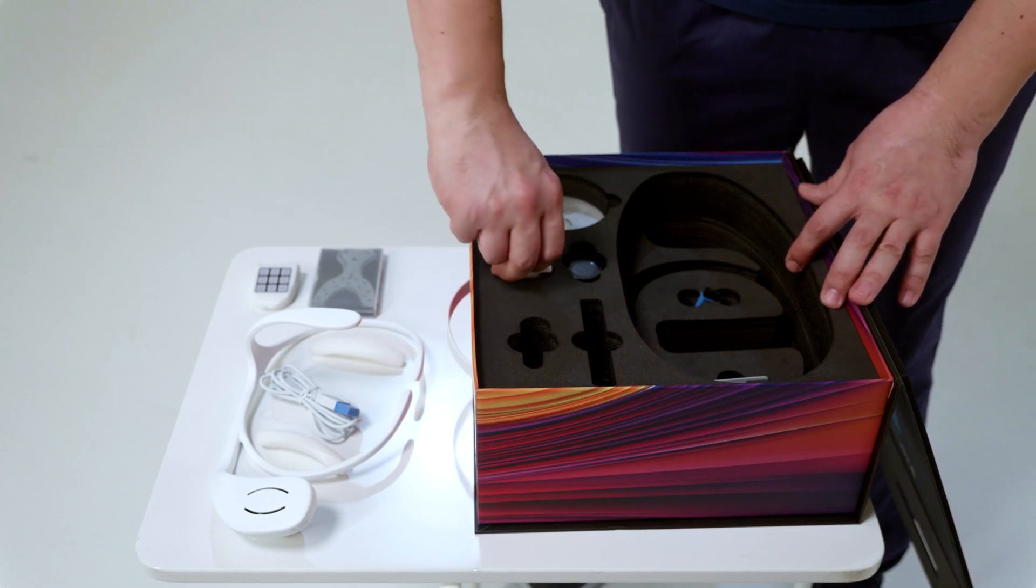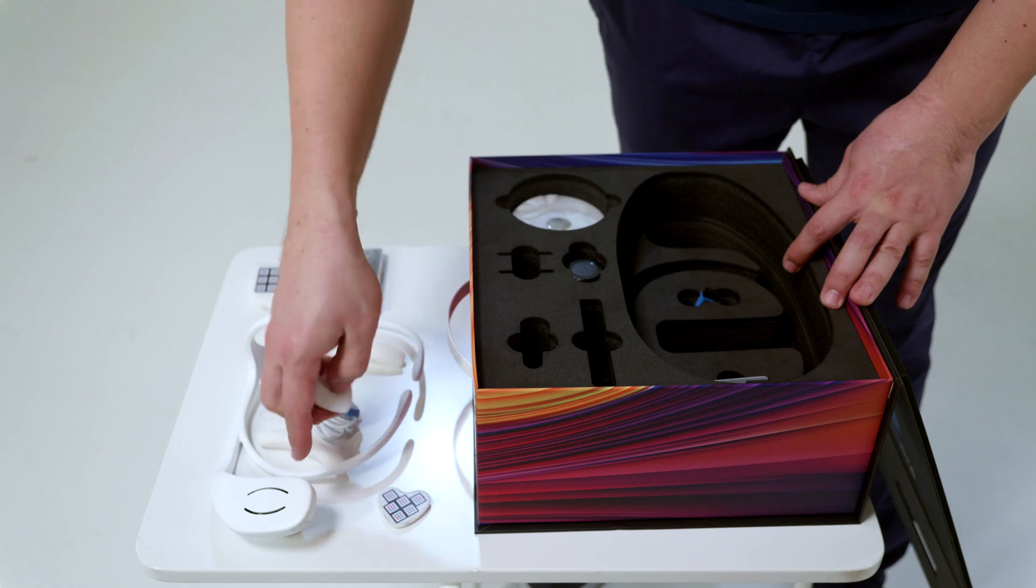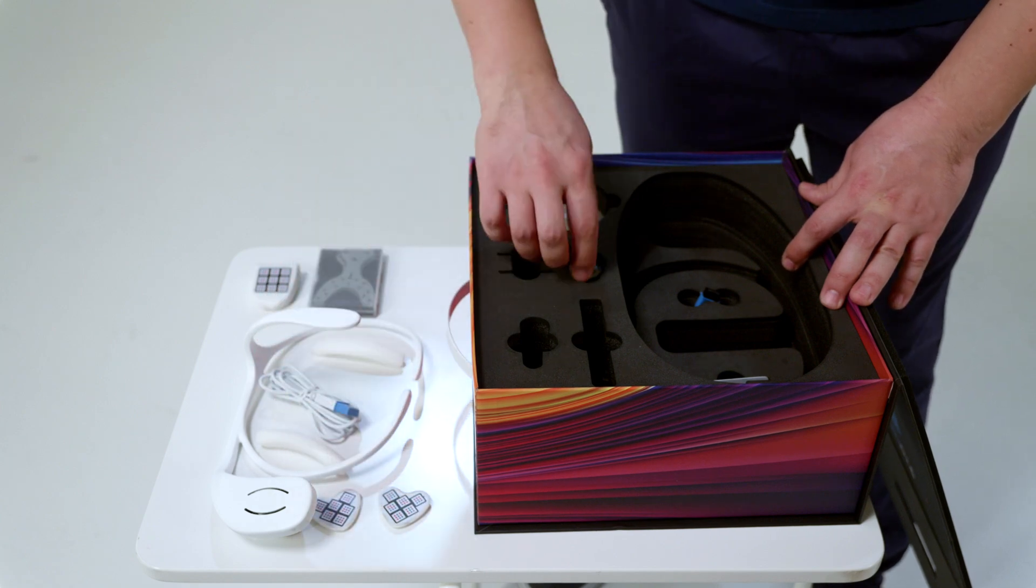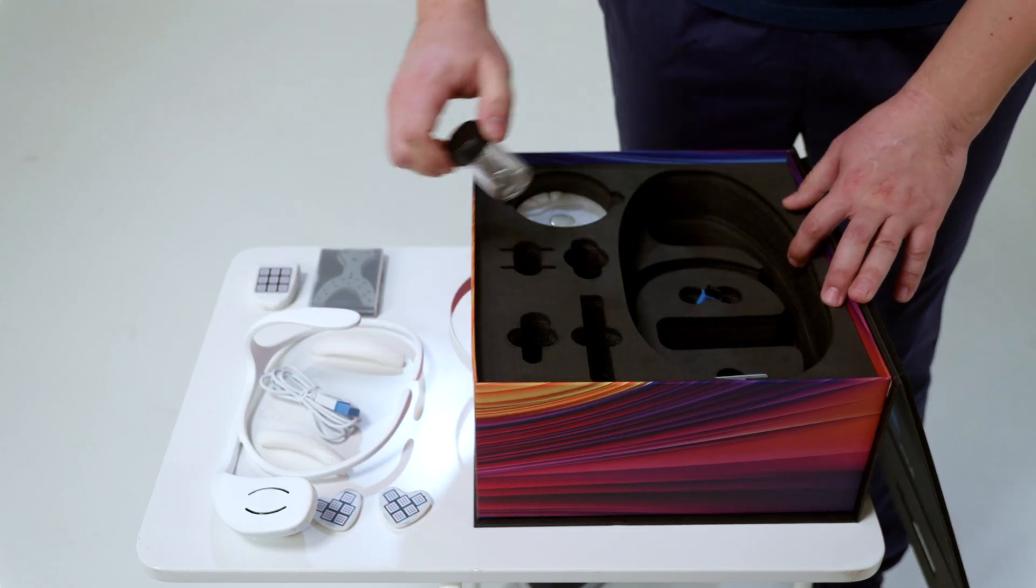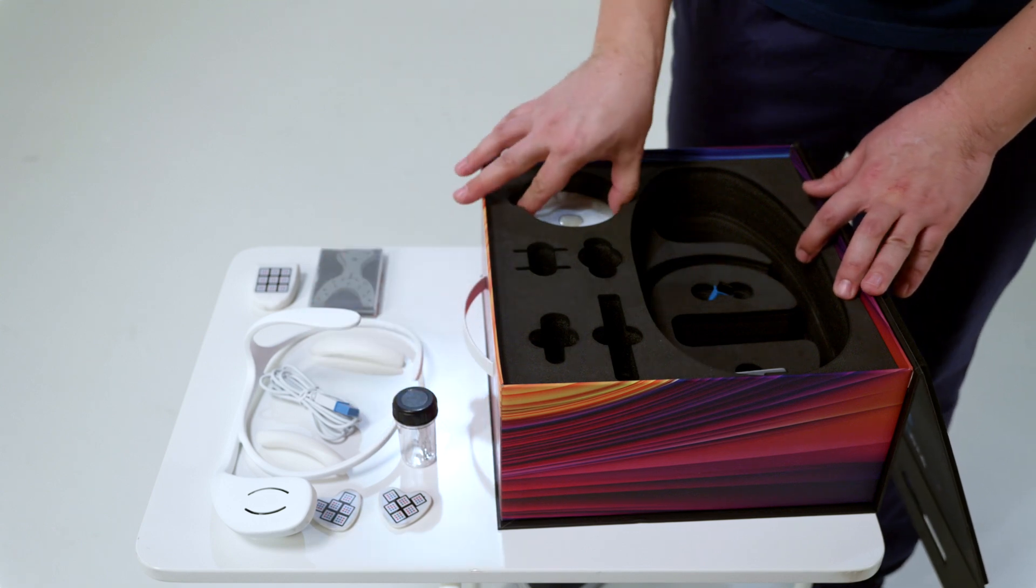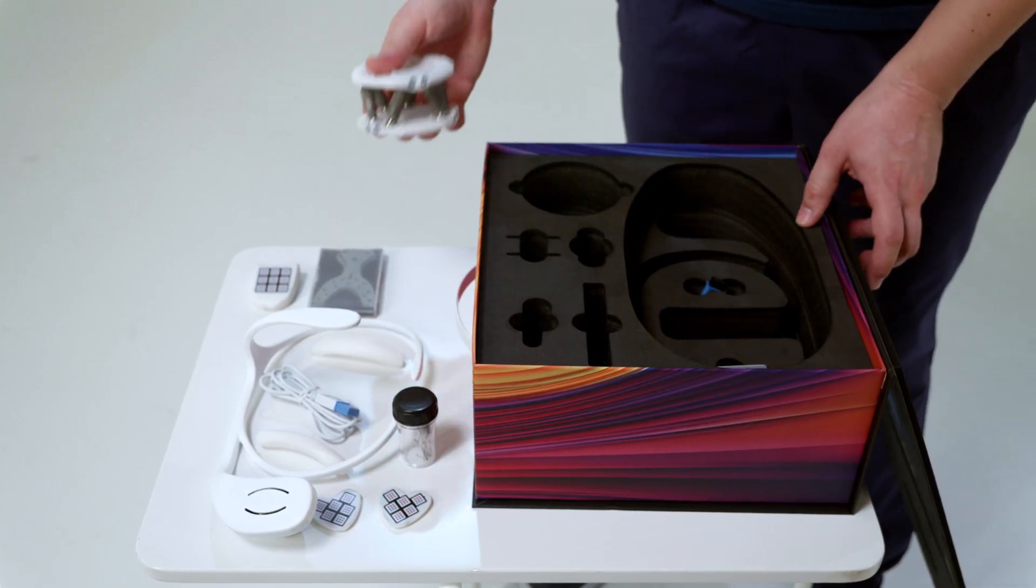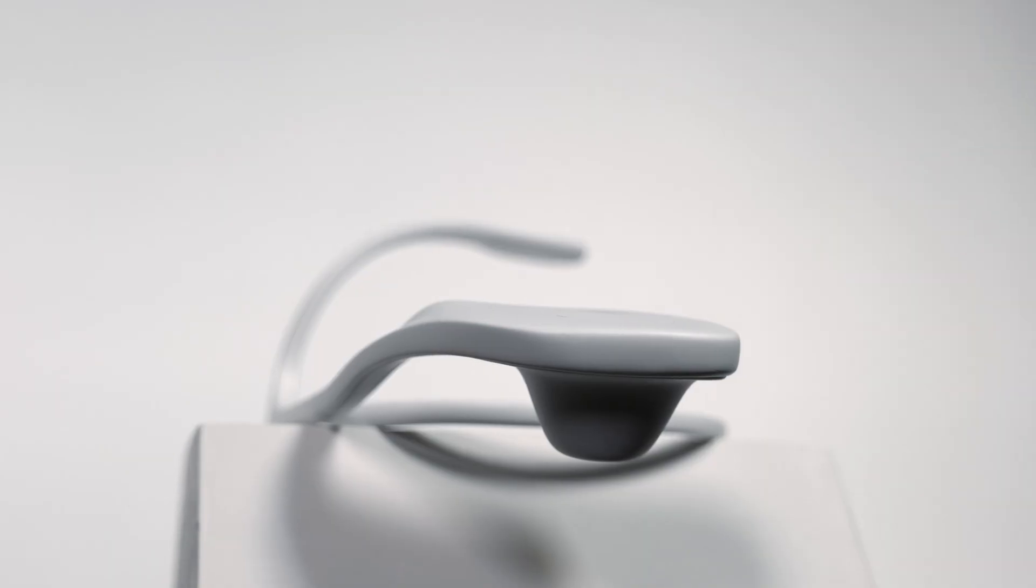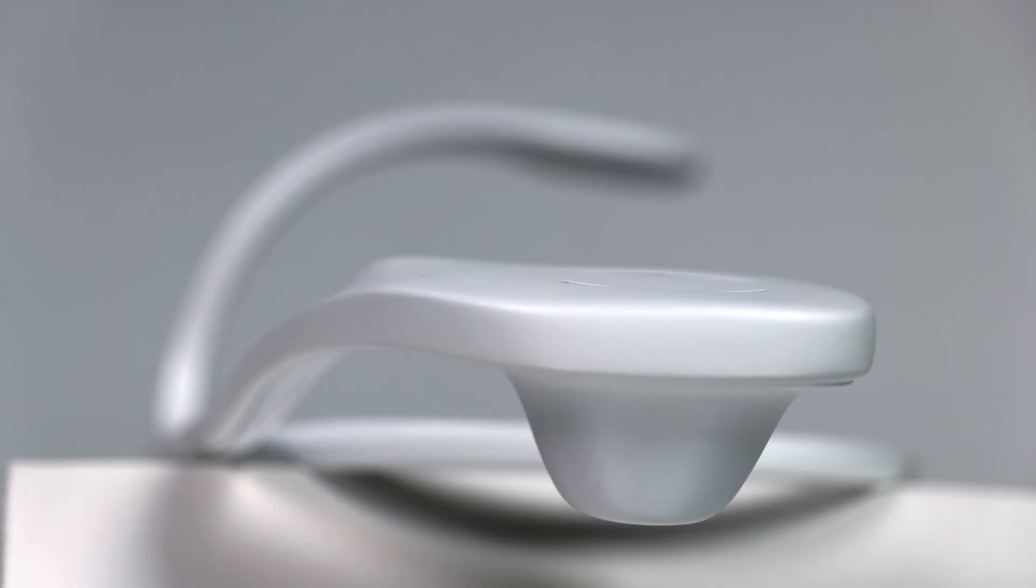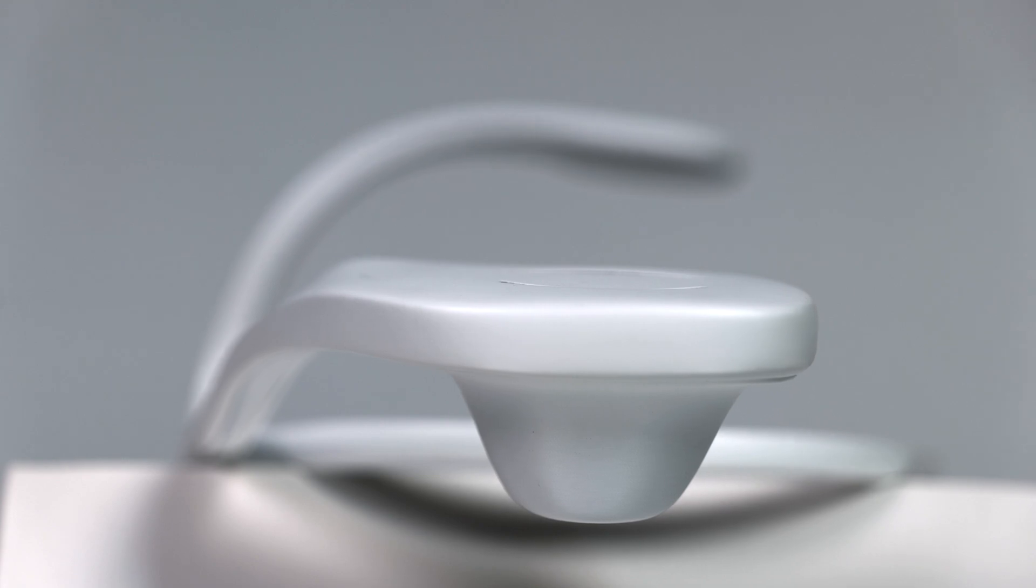Side Markers for Axiograph. These markers are attached to the teeth with holders. And a stand for fixing plaster models in the articulator. The main apparatus is an optical axiograph.